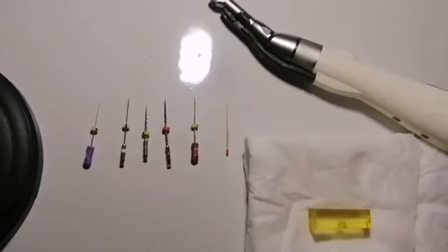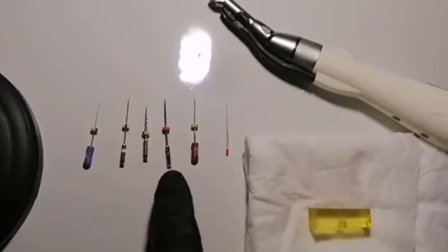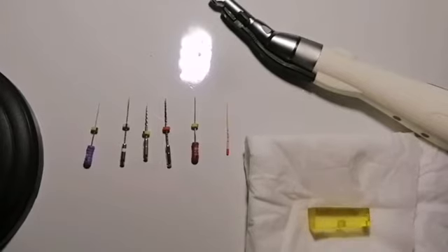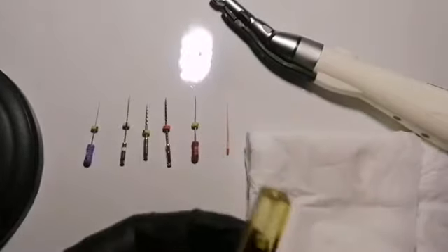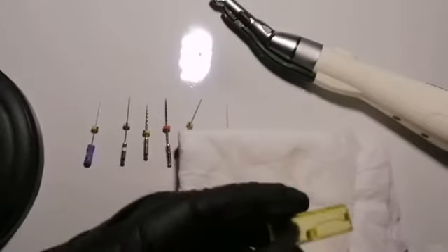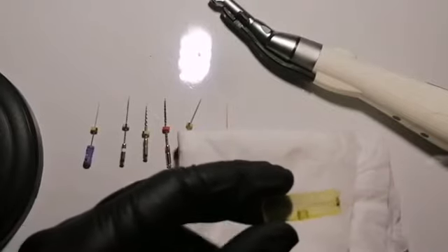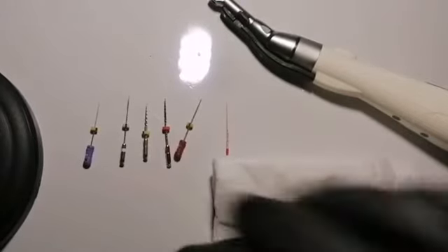Hello everyone and welcome again. Today we're going to show you how to use a Rainbow One file on endoblocks, using the manual instructions of the Ramo Medical Company. It is a single file system. Before we place any file inside the canal, we need to irrigate the canal with normal saline or 5.25% sodium hypochlorite.